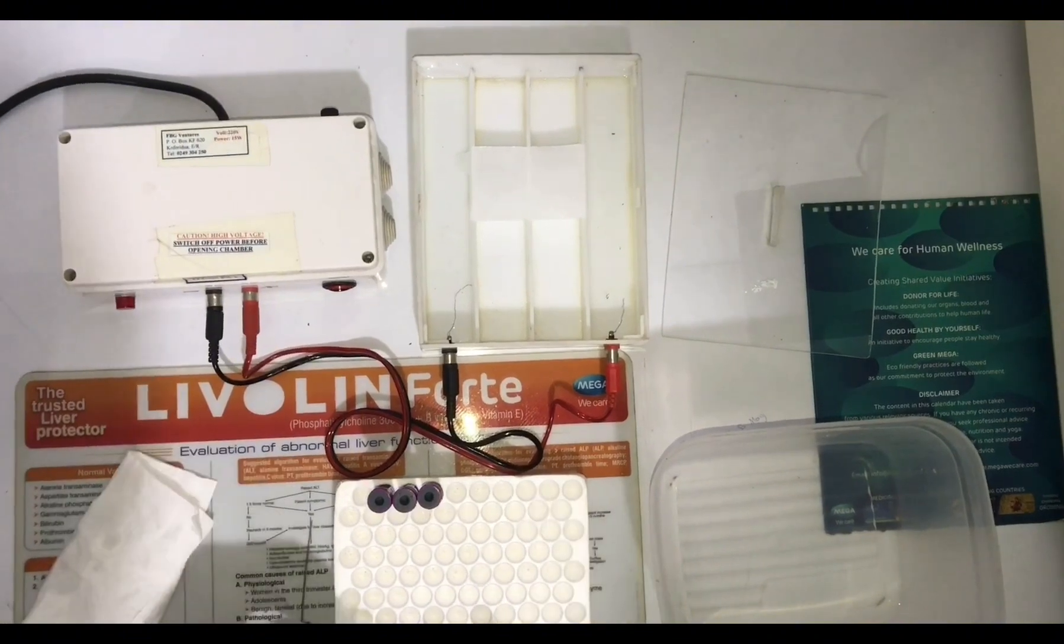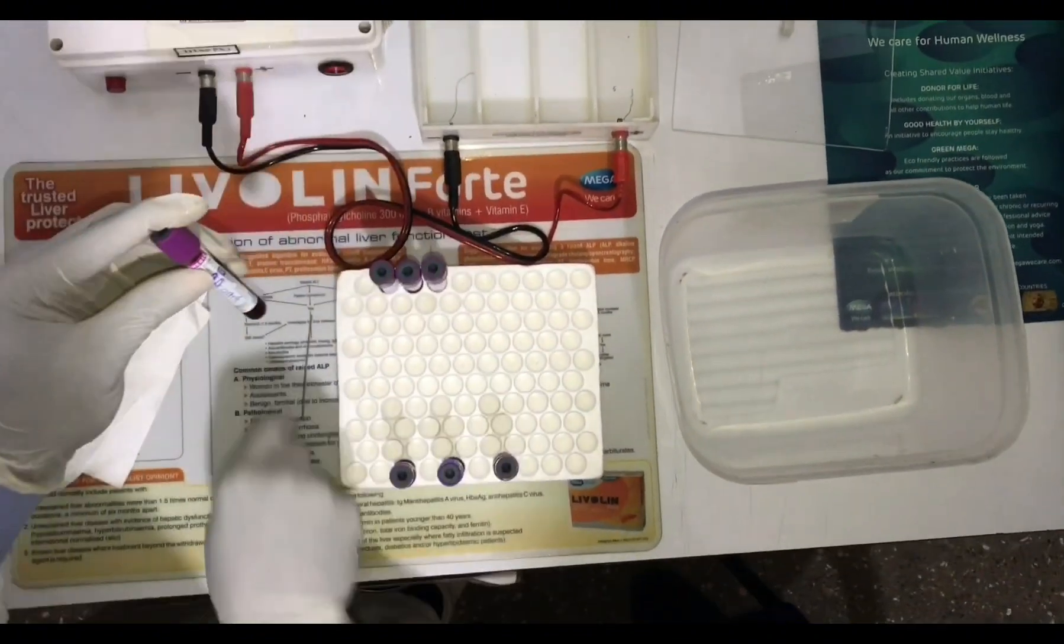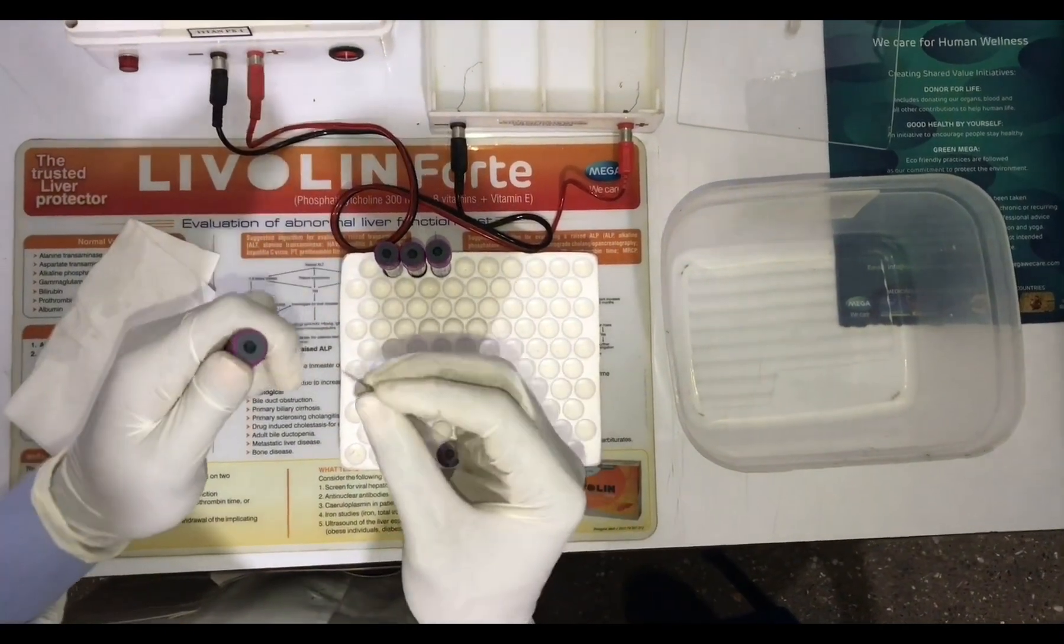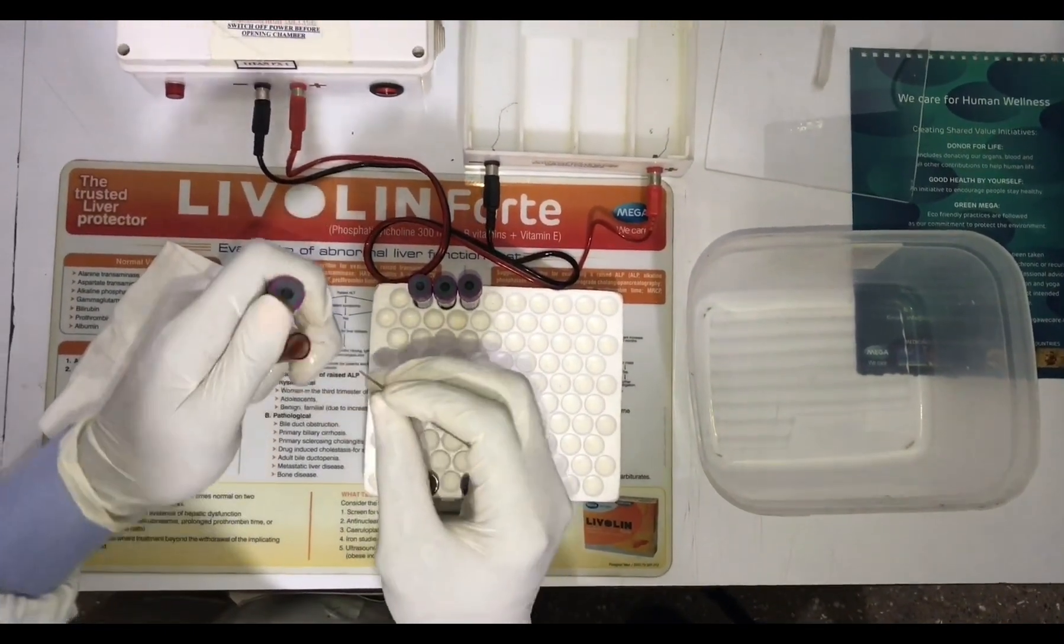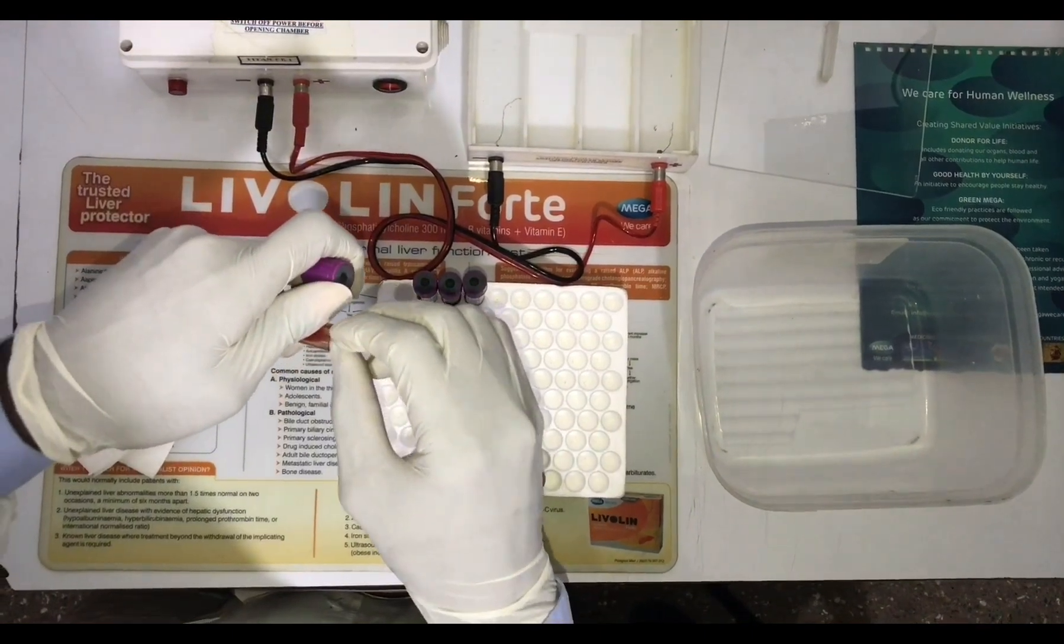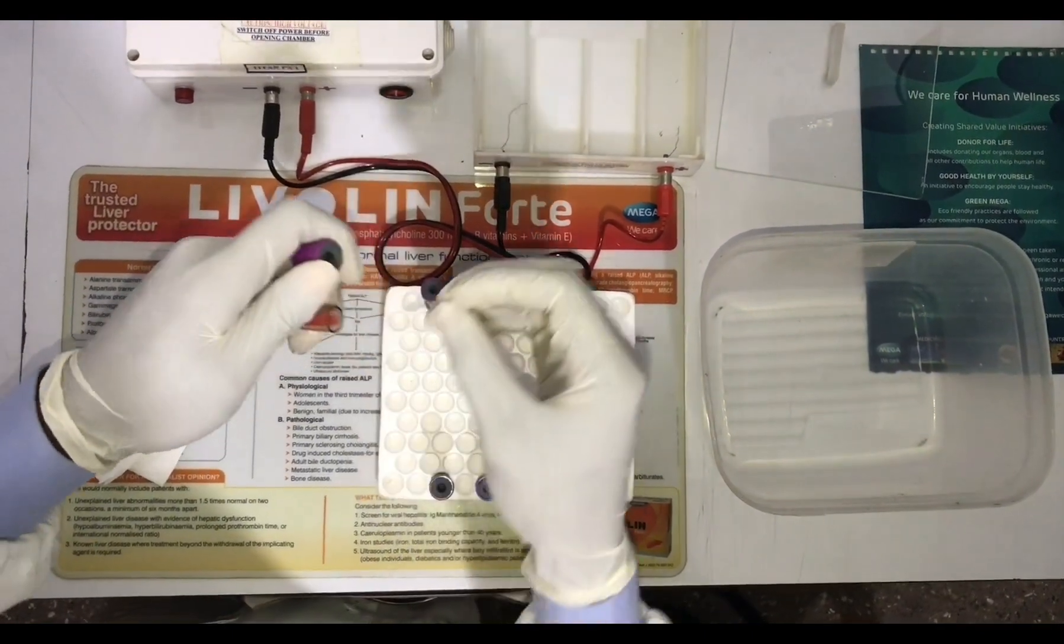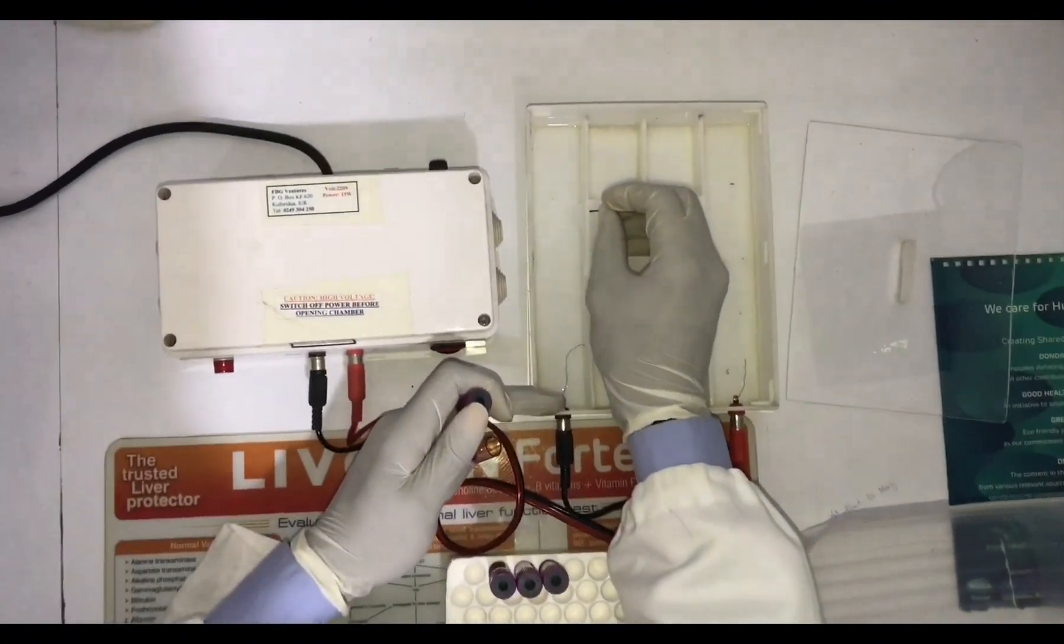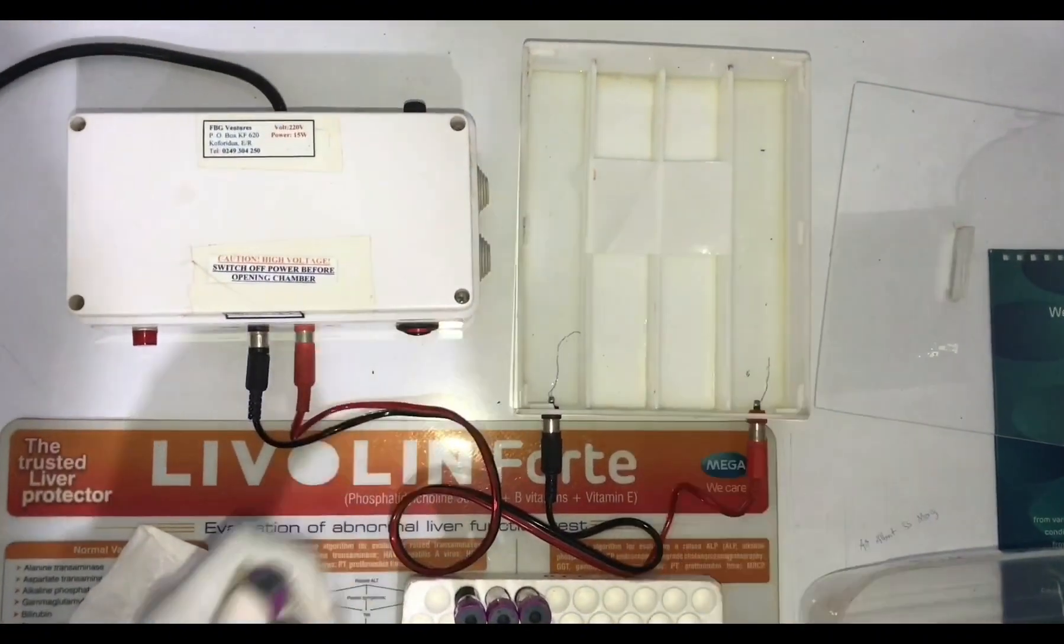Now the paper is placed nicely on the walls of the chamber. The first thing you have to do is reach out to your controls. This is the AA control I'm holding in my hand right now. You get your applicator—I'm using this tiny wooden stick as my applicator. Dip it in the sample and make a line at the far end of the cellulose acetate paper. Remember, that's your AA control.